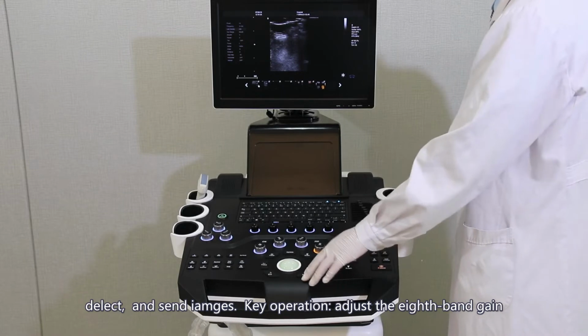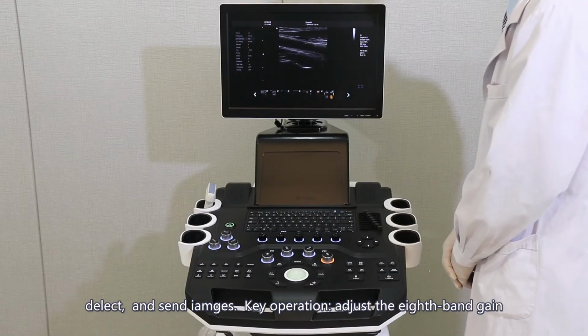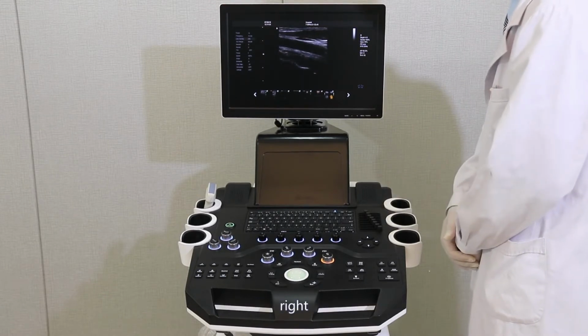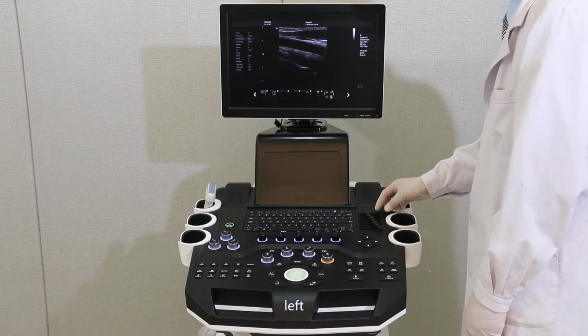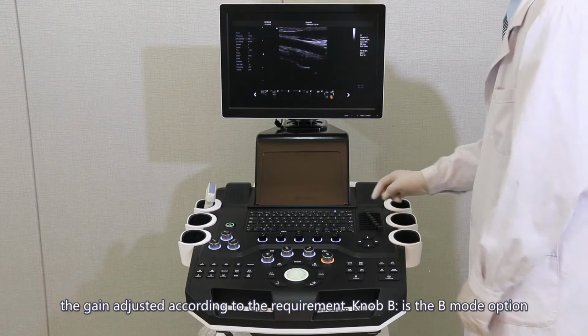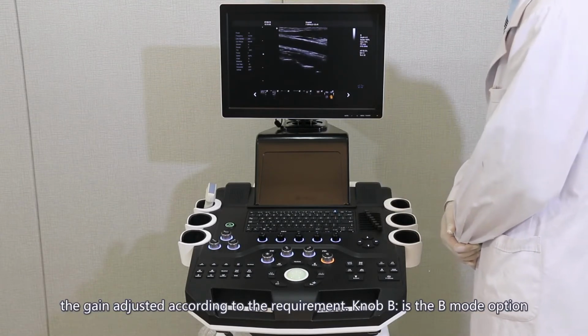Key operation. Adjust the 8-band gain on the upper right of the operation panel. Right is to increase the signal. Left is to decrease the signal. The gain is adjusted according to the requirement.